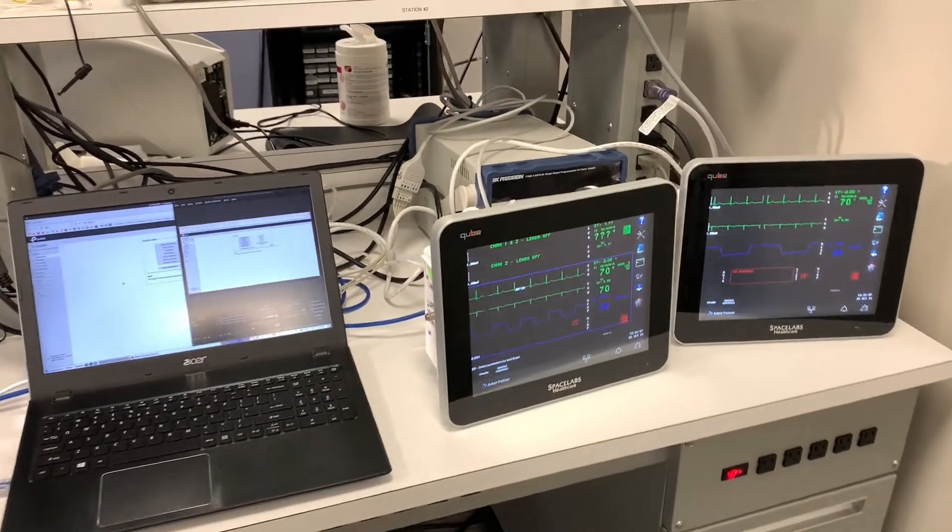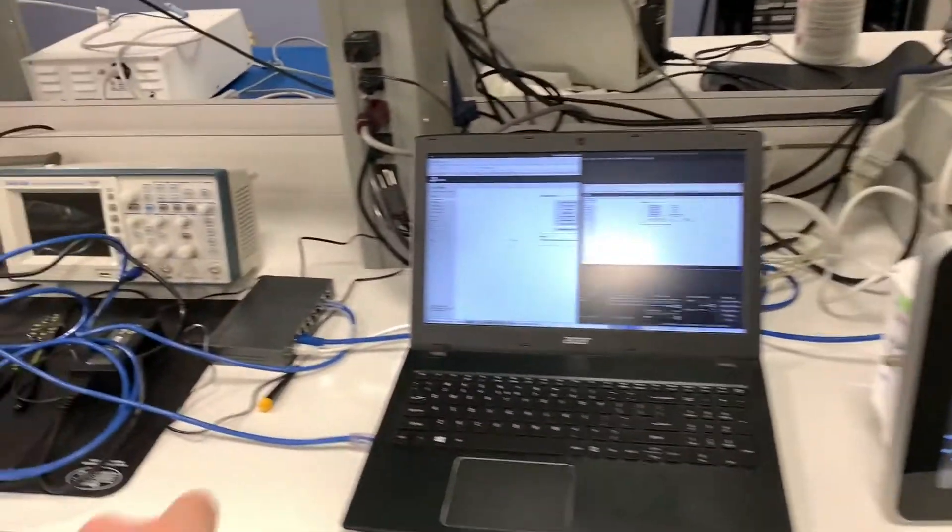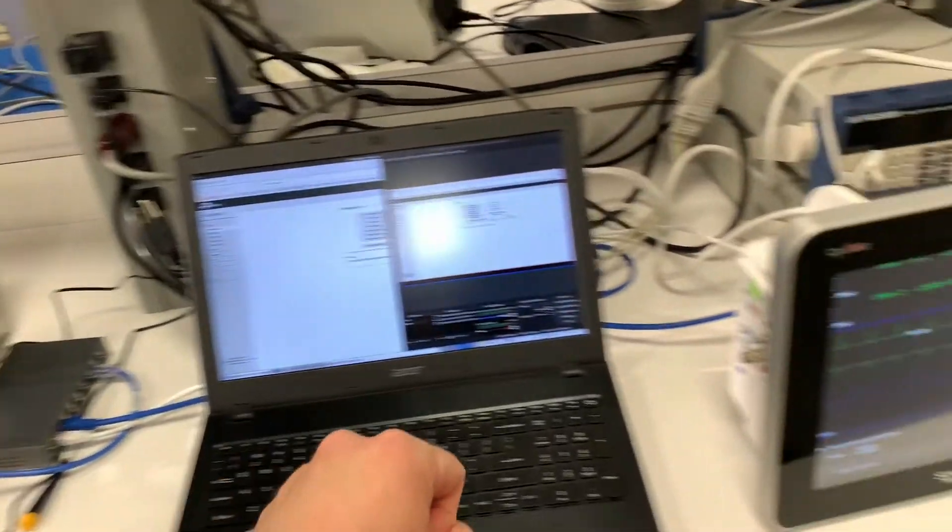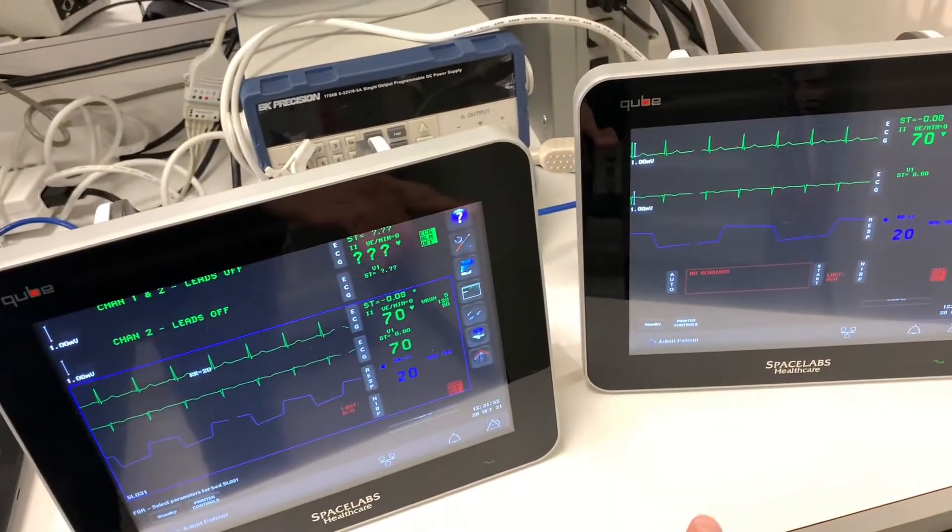In this video I want to show you how to get port mirroring set up so that you can see the traffic that's flowing between these two ECGs.